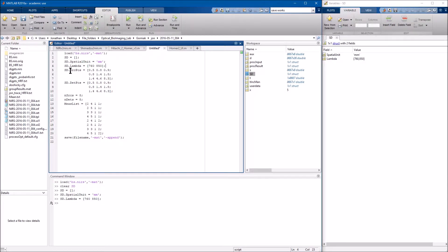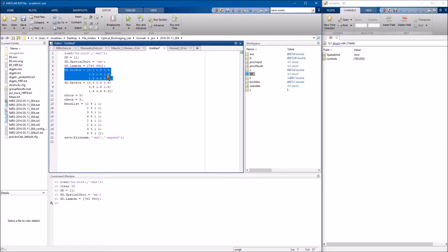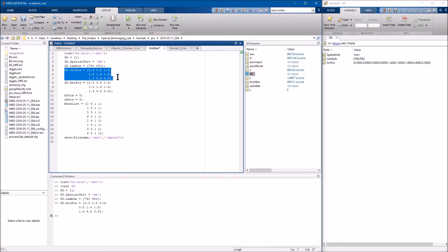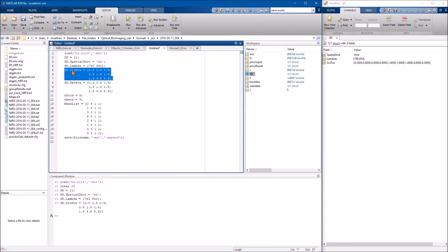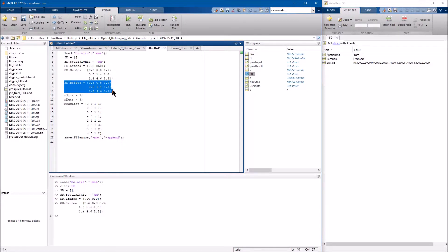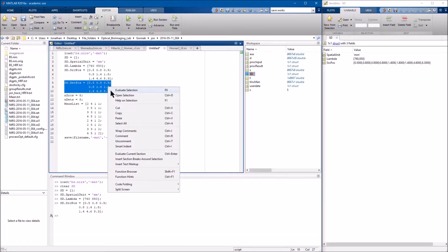Next you would need the source positions. These are just XYZ coordinates. I've just created some pretty nonsense coordinates here. Now I have my source positions in there. And also keep in mind you're going to want it's going to be XYZ per every source and per every detector. Or in this case, sources for source position and detector for detector position. So here I'll go ahead and run these as well. We're starting to build it here.